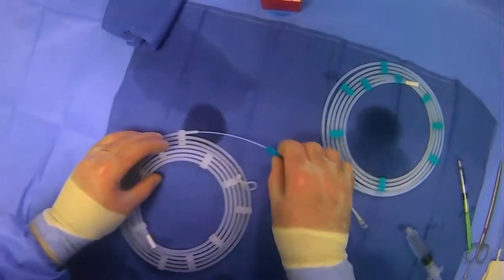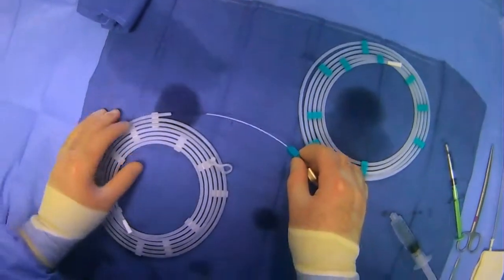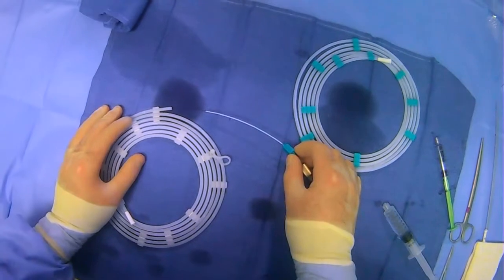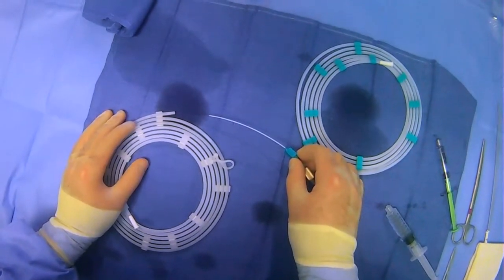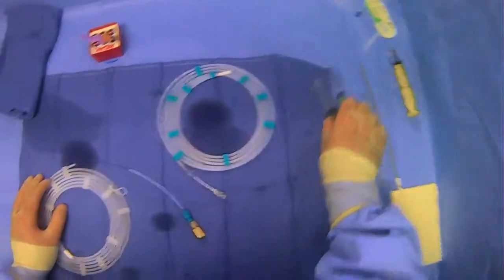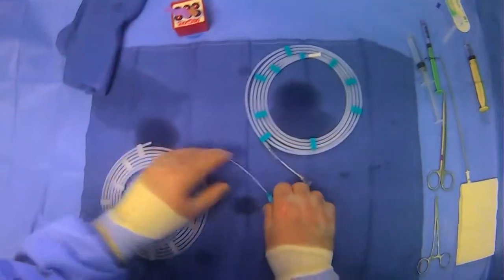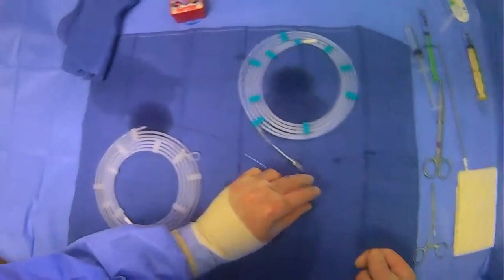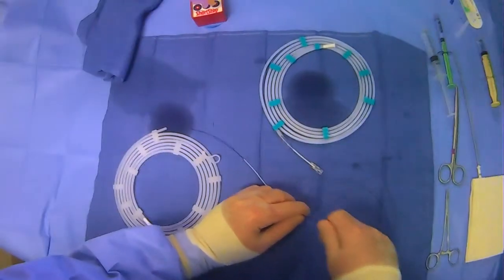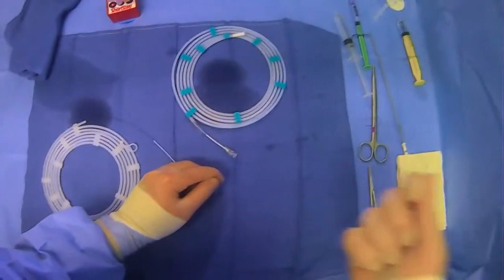Now this has a little cheater on the end because of the snare mechanism. So you can actually load it into place. To do this, what we're going to do is take out the snare and coil it up here. And then we'll feed it into the microcatheter. So what we're going to do is just collect the wire here, keeping an eye not to pull the cheater off.